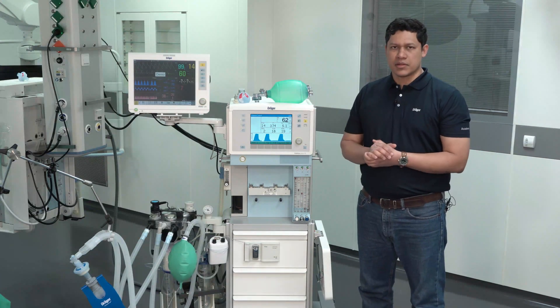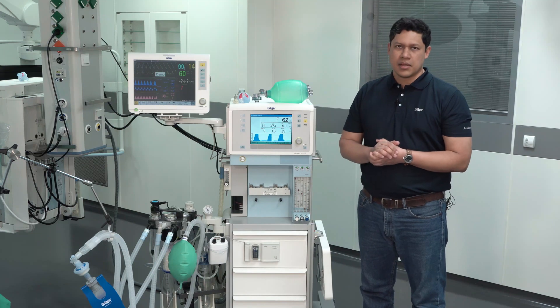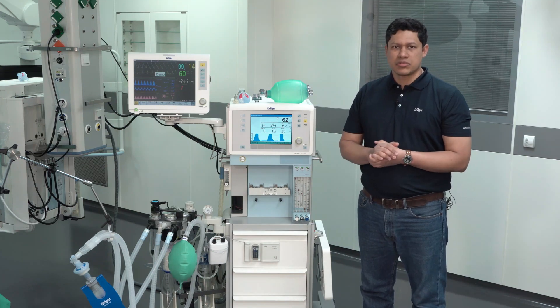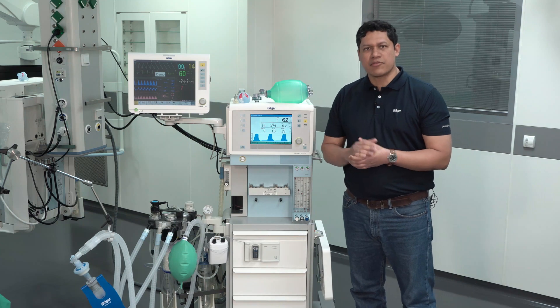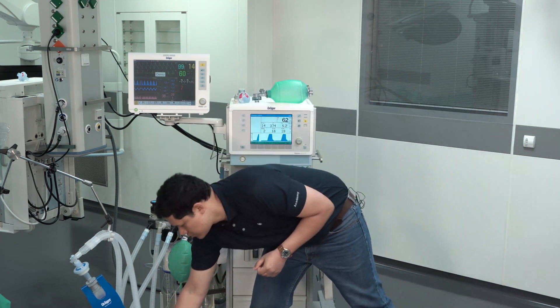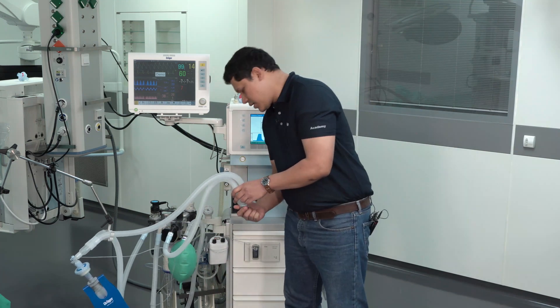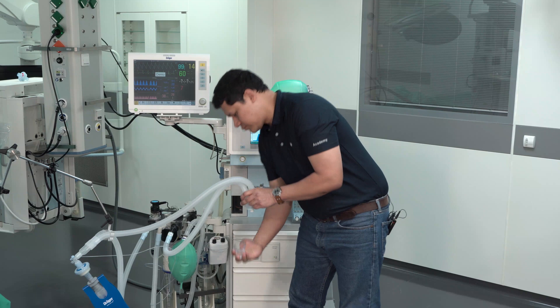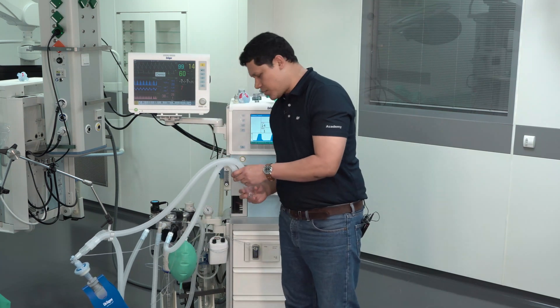It is also recommended to frequently check the breathing hose system. If possible, use a hose system with a water trap so you can drain it if condensed water is present. Take the water trap, unplug it, and drain it. Then put it back in place.